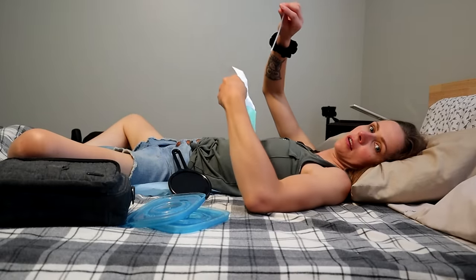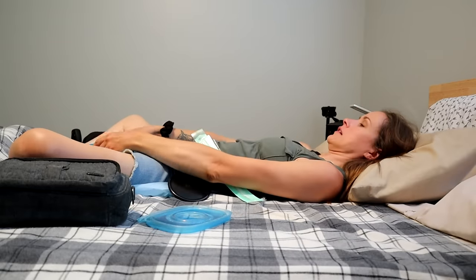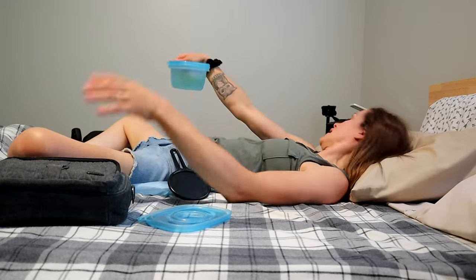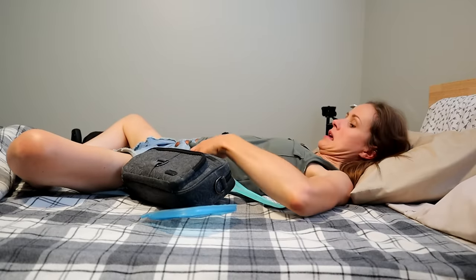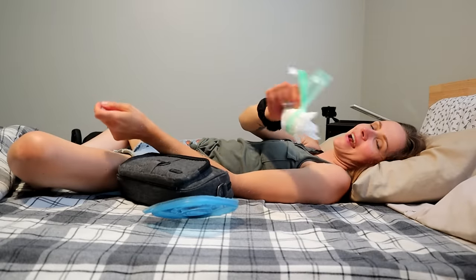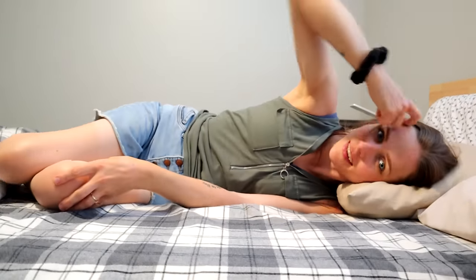When I'm done, I just slide the used catheter back into the package and fold it up with the used catheter in it. Then I take the lid, pop it on the container full of pee, make sure it's really tight, and put it back in my nightstand. I use another wipe to wash my hands, then take the package and fold the catheter package around the wipe and chuck it in the garbage. I put everything back in my nightstand, roll over, get the hair out of the way, and go back to sleep.